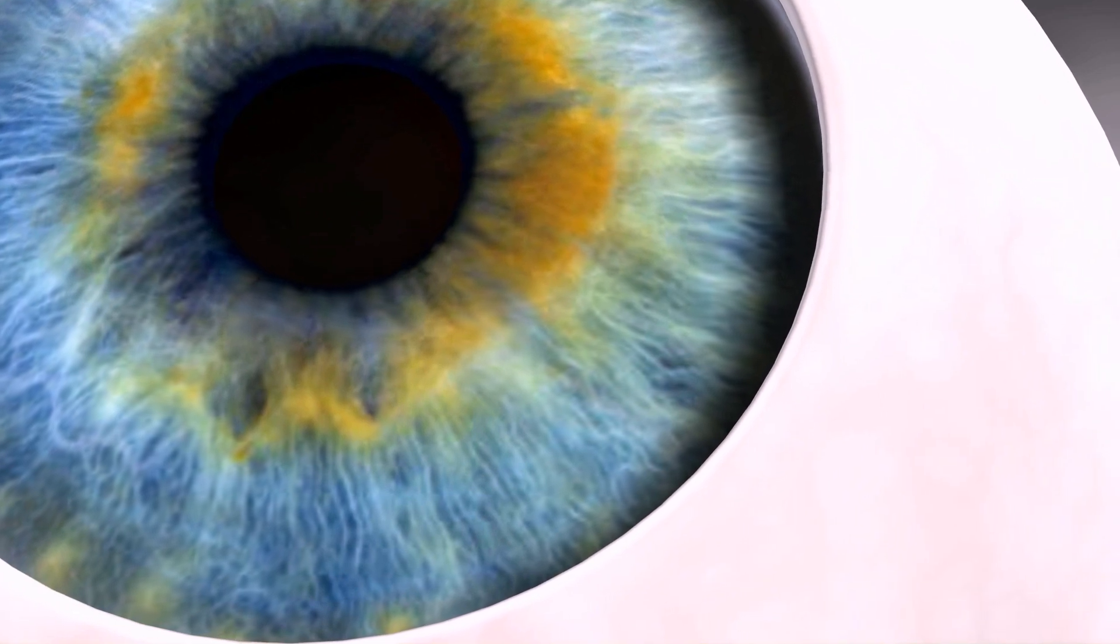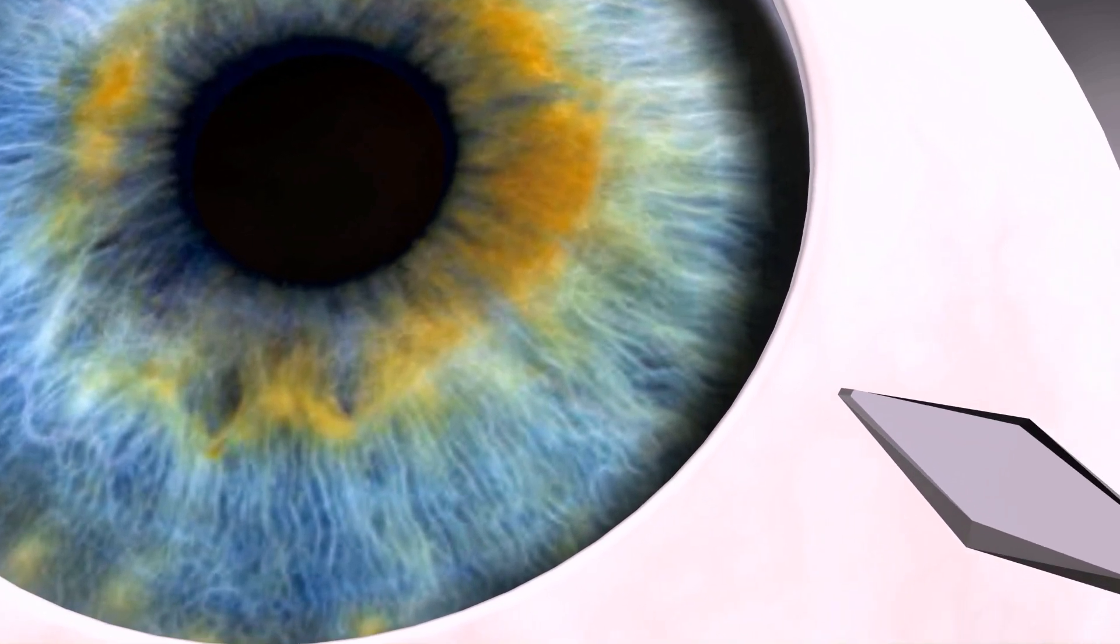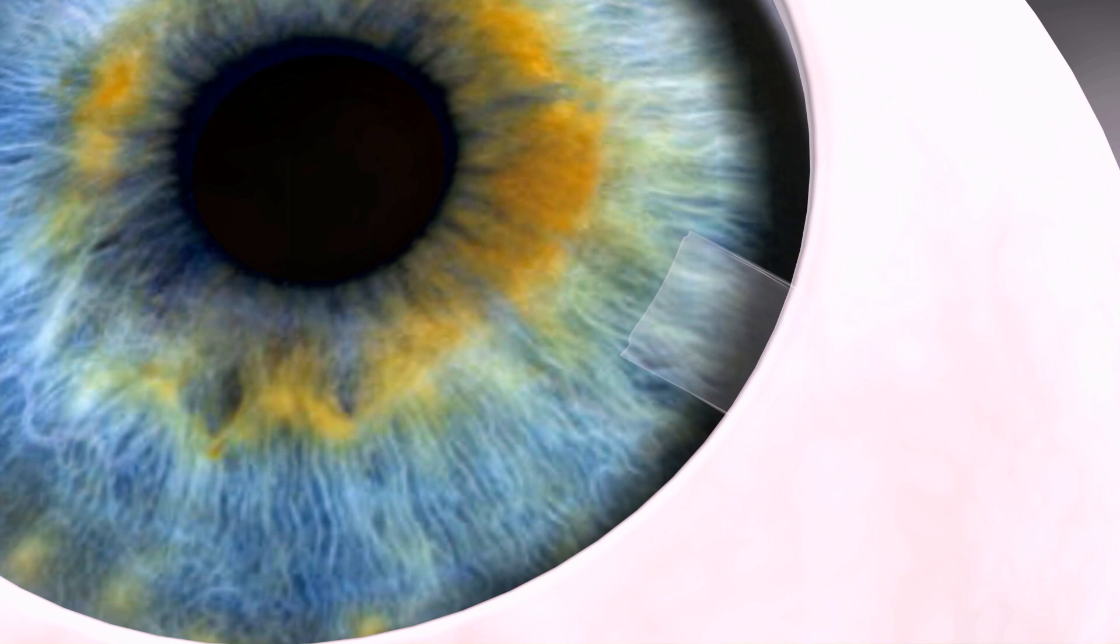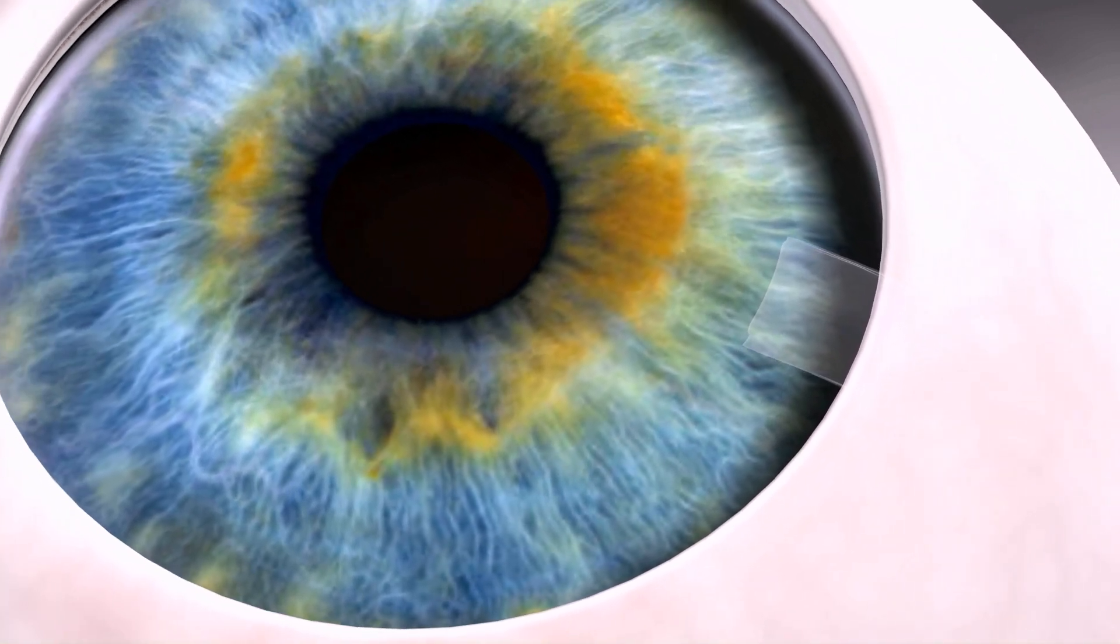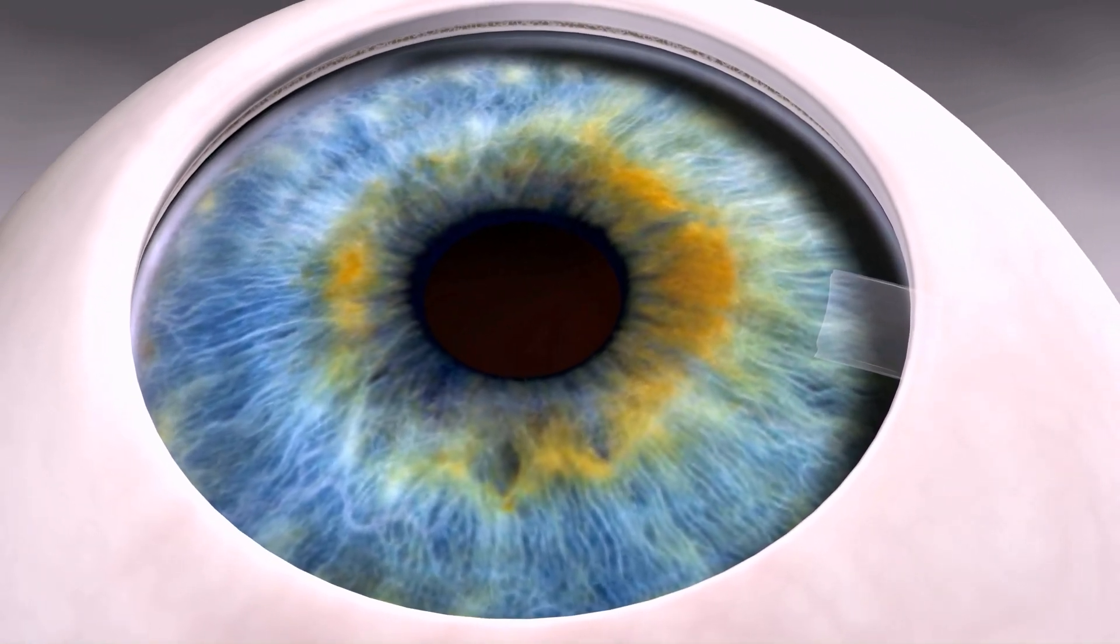A standard paracentesis is made. If the device is being implanted in conjunction with phacoemulsification cataract surgery, the surgeon may choose to insert the device through the phacoincision.